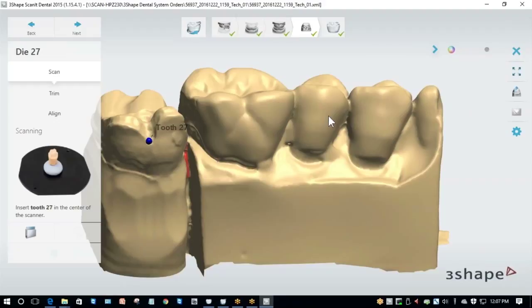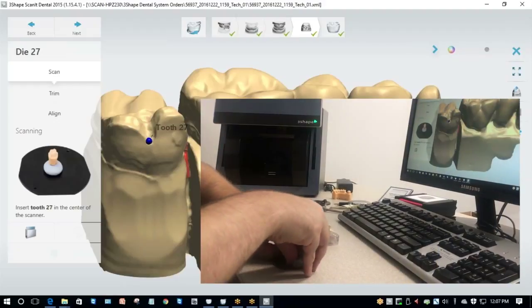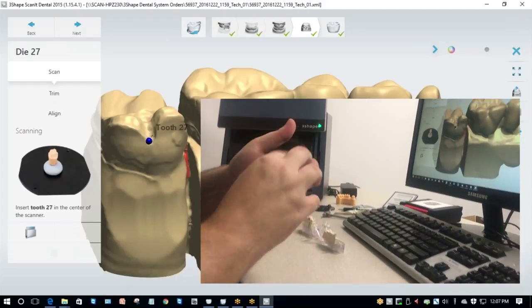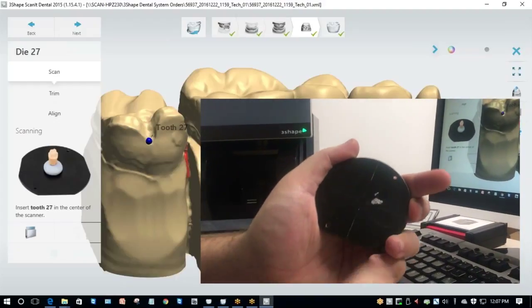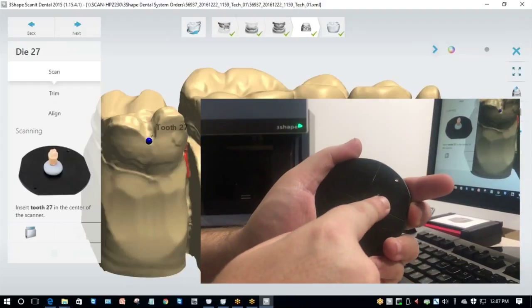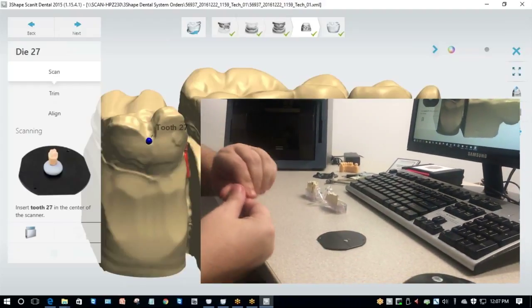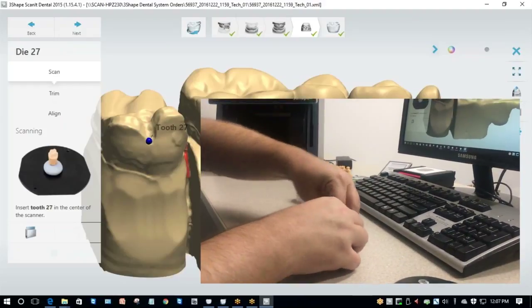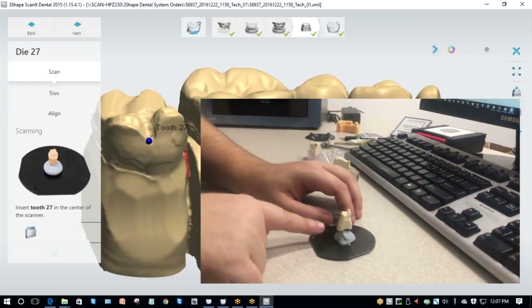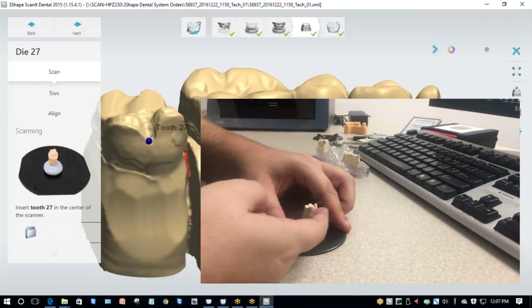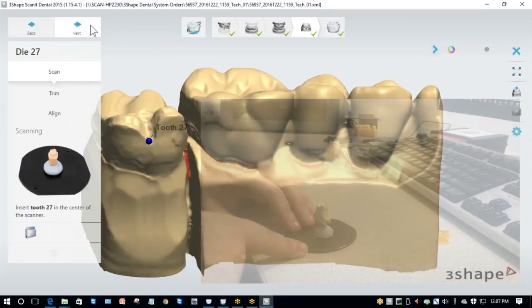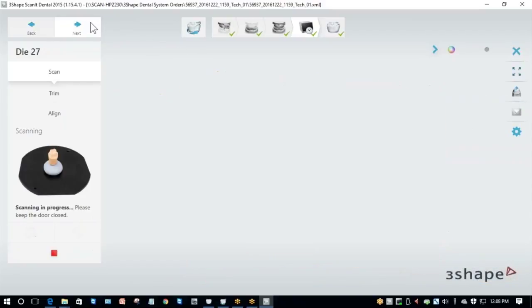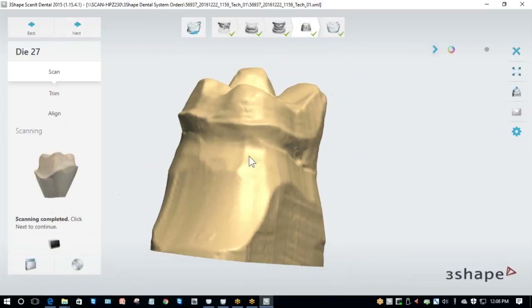It's important to keep track of where you're placing the die on the scanning plate. You'll notice there's a crosshair pattern on the plate with a vertical line and a horizontal line. You want to make sure that your die, when you're scanning just the die, is in the center of that crosshair. Once you get the die, load it on the plate and remember it's a good idea to keep the buccal side on the round side. We close the door and hit Next. Now it's finished scanning my die.